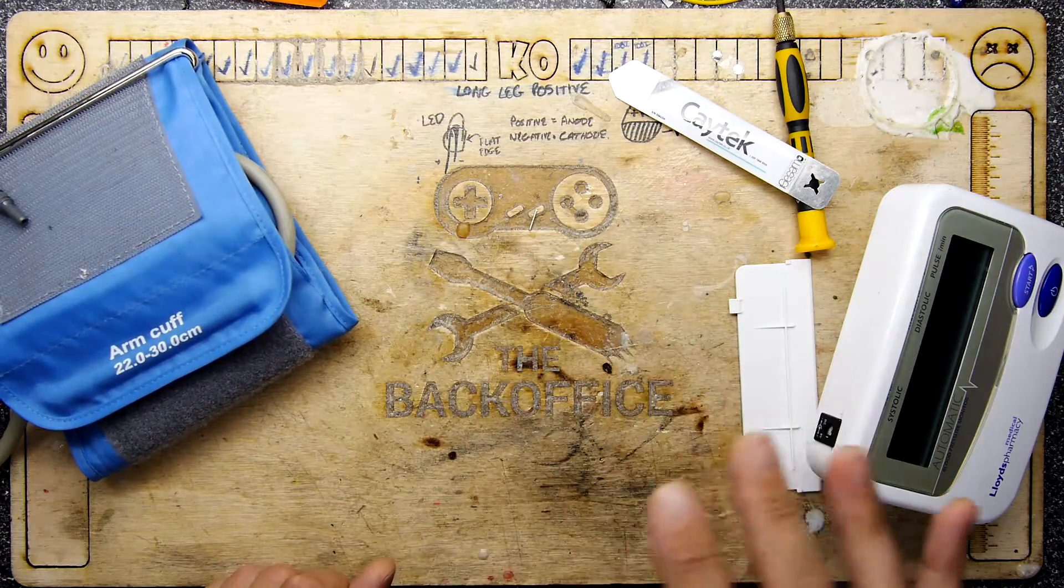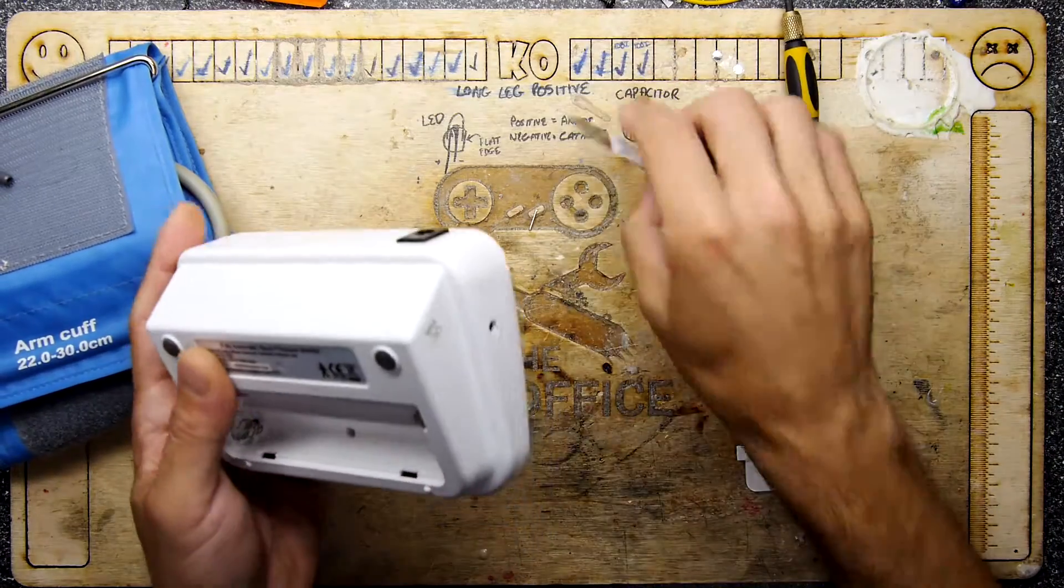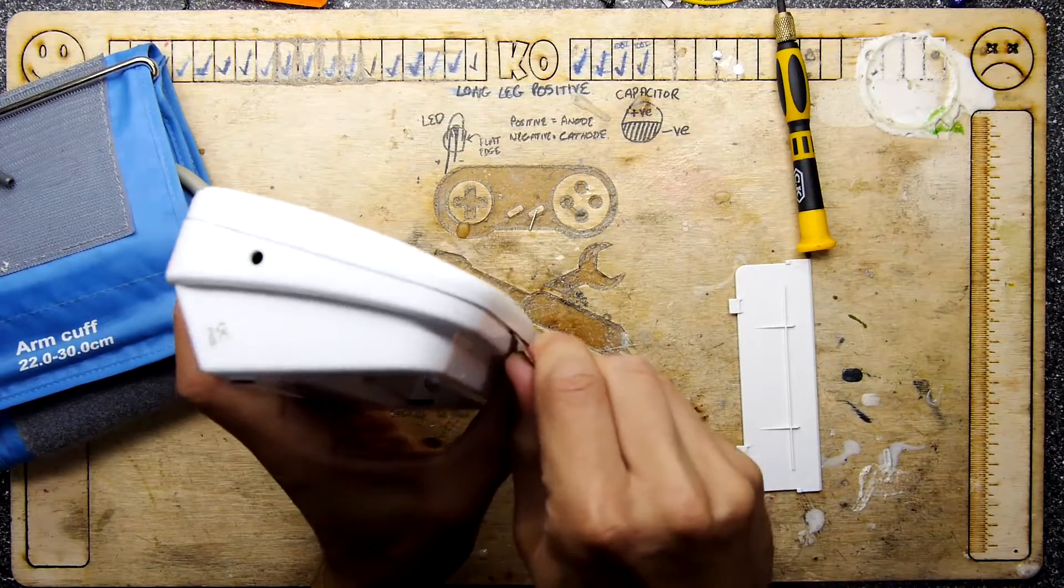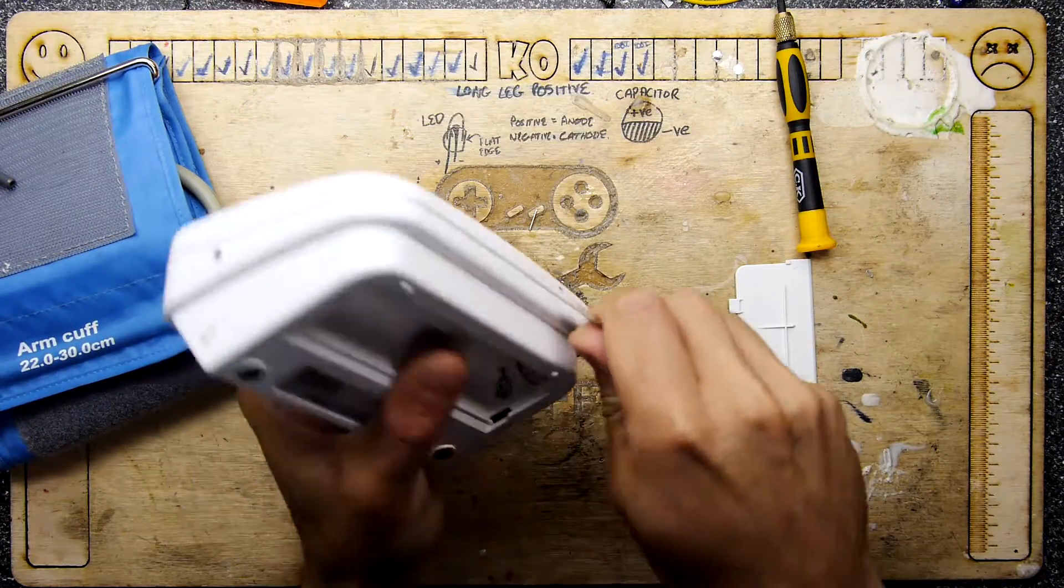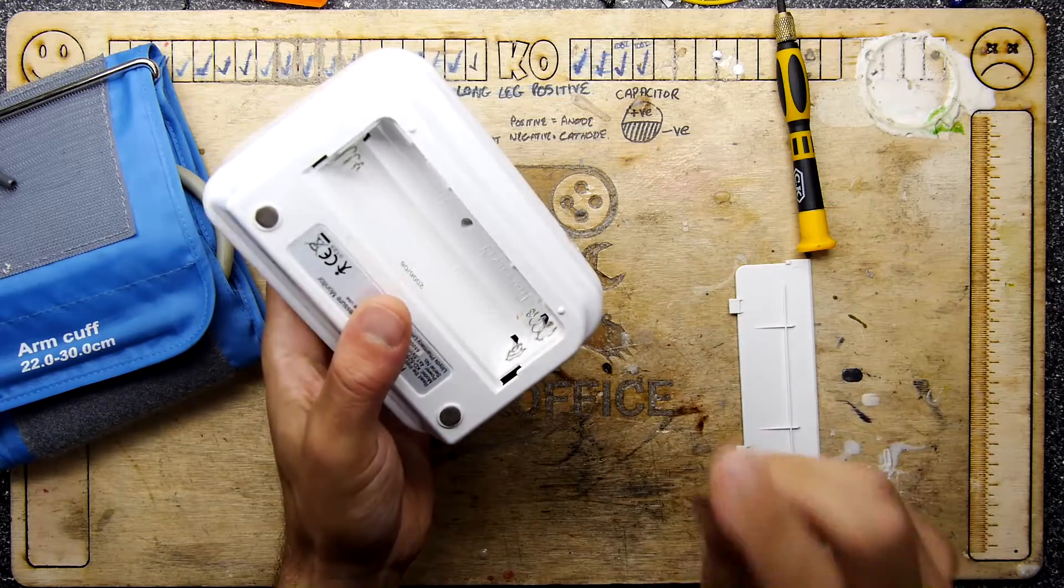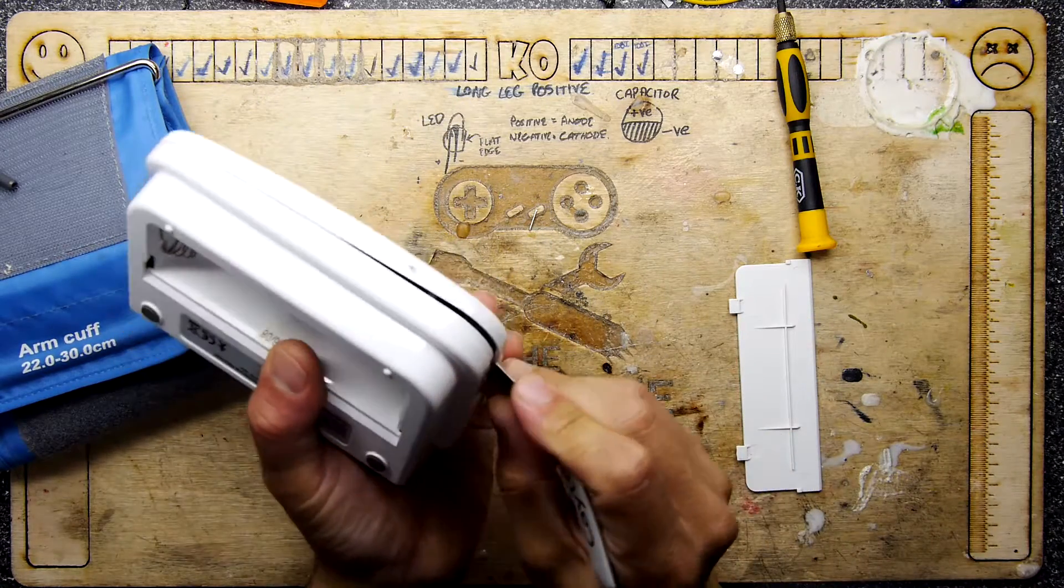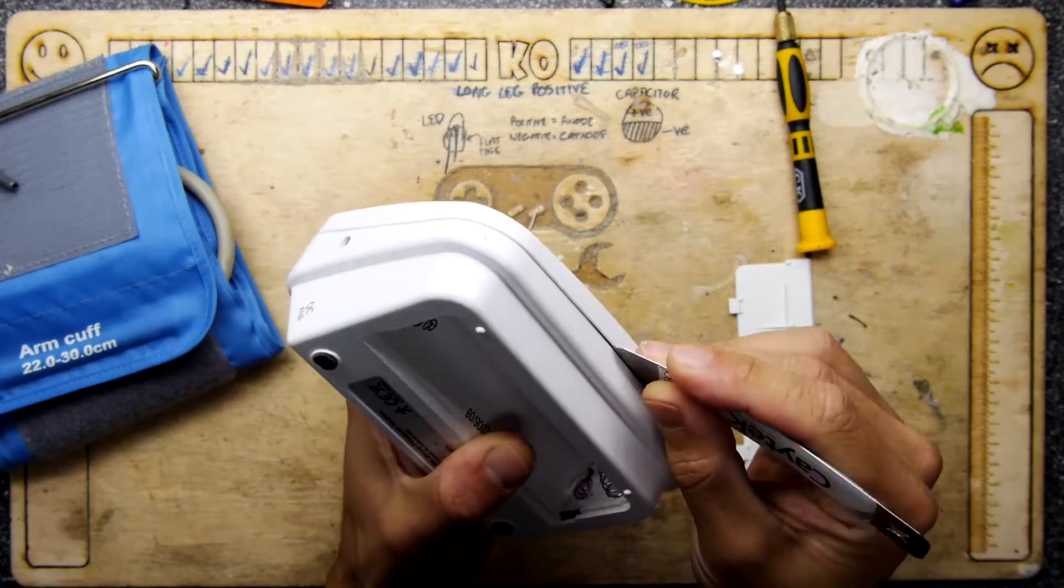I don't think, there's the possibility it uses pressure, differentials in the pressure to sort of calculate the pulse, but it might also hear it. I'm not sure. And then it just basically lets the pressure out.